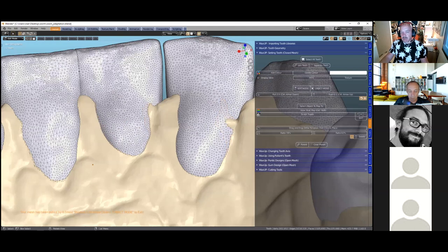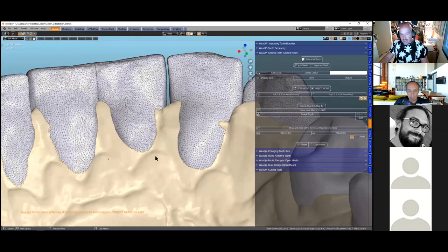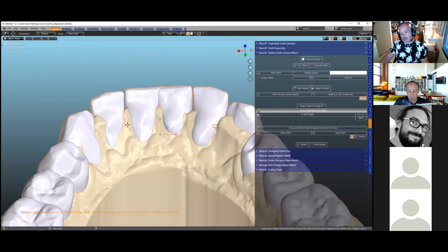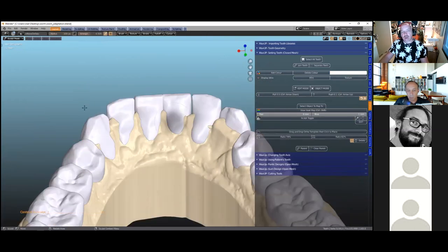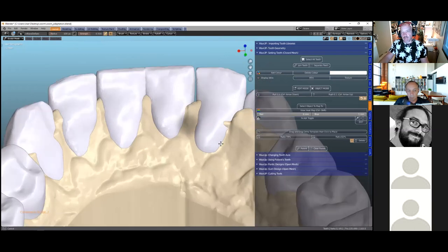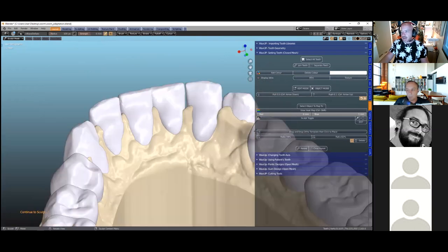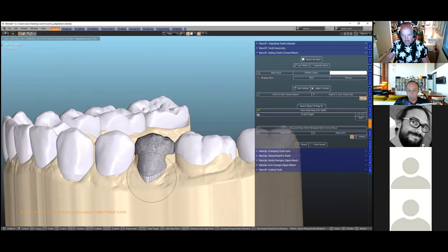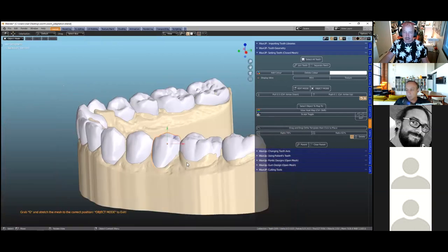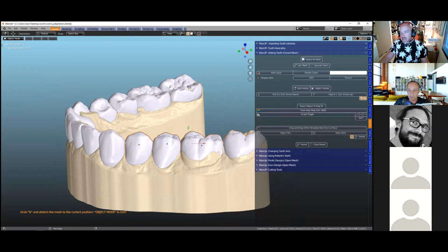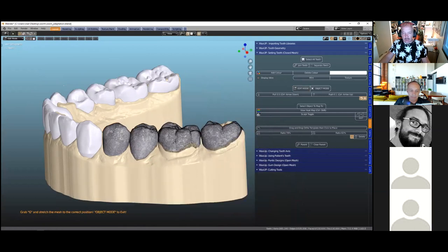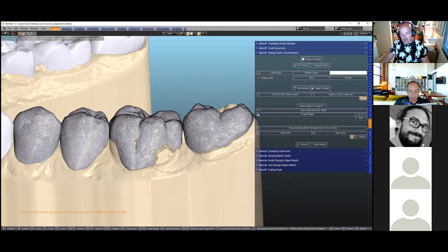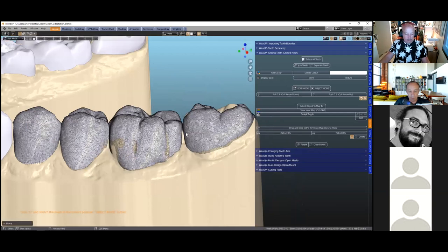We can control-arrow the mesh up or down by 0.5mm increments for perfect thickness control. Then use the thickness tool — select model, take all the teeth, view the heat map, enter sculpt mode, and sculpt to make it thicker if needed. It's a bit like pulling a sock: go into edit, click, press G, and just pull it. We can do all teeth in one go by selecting and joining them, then editing all at once.